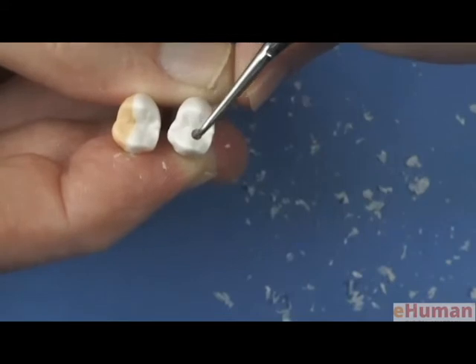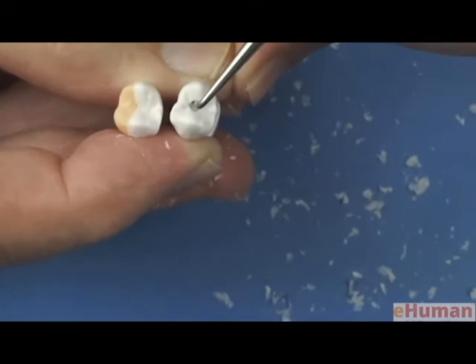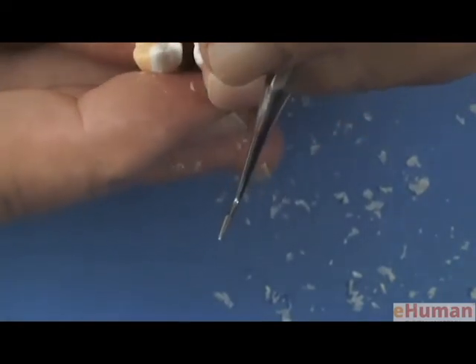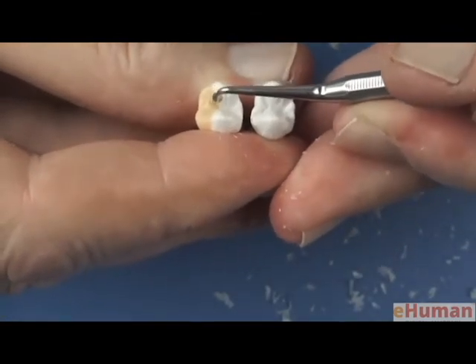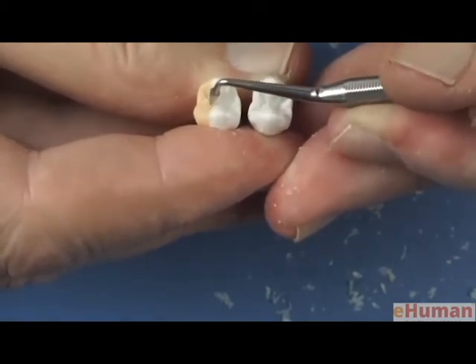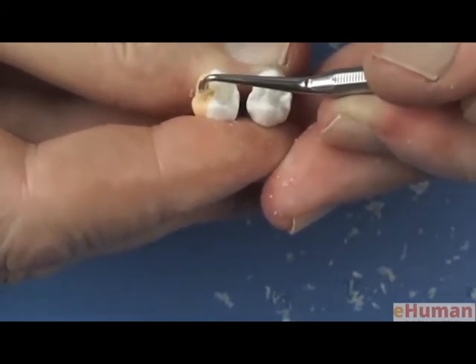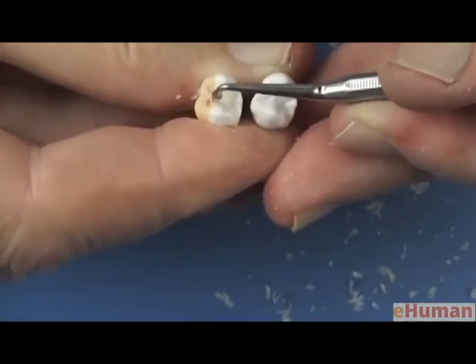And then we have some other grooves that are developmental in nature and some smaller supplemental grooves. Developmental grooves separate the major components of a tooth, and the supplemental grooves then subdivide those major components by more shallow depressions. So it's nice to look straight down on these two teeth and do your carving that way. Take the sharp instrument, this little pointed cone, and carve those grooves into the tooth just like you see them. Location, curvature, and then let's put the one that crosses the marginal ridge. We'll carve that into the tooth.